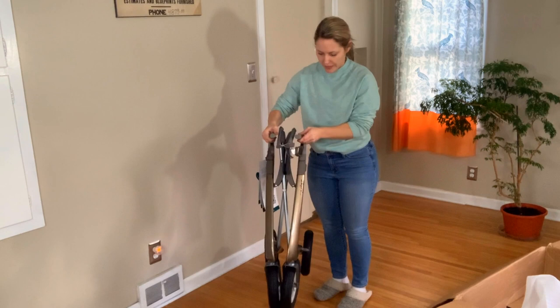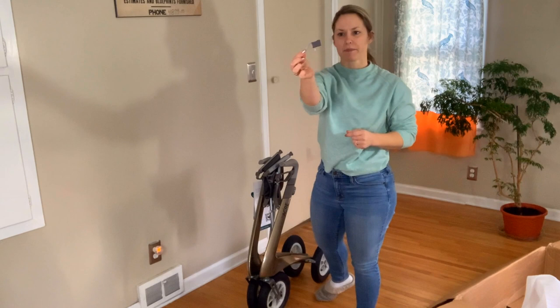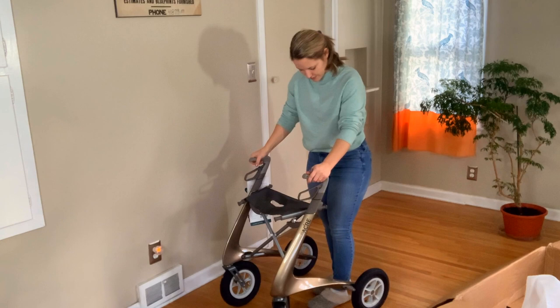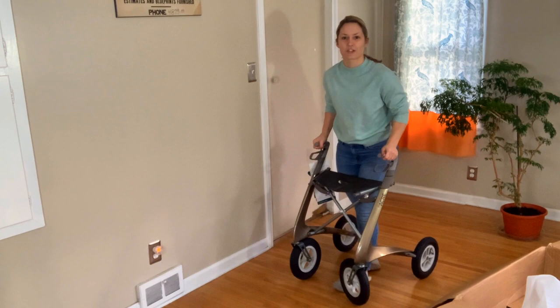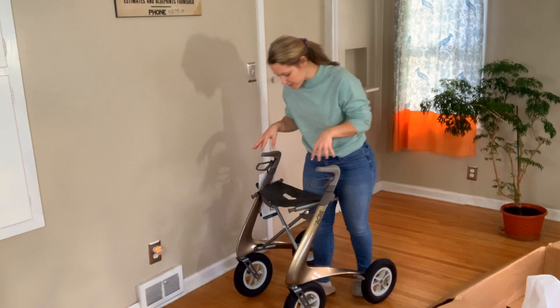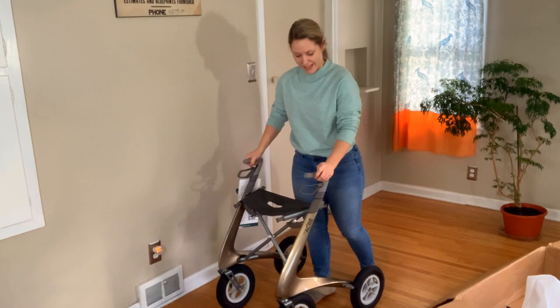It looks like it is a gold metallic, which I'm loving. It comes with something just holding the two tops together. These tires are definitely sturdier than the Ultralight — they look like car tires. There are deep grooves in them and they have little forks on the front. You can tell it would stick to a lot of terrain — even maybe the beach, definitely grass. Looks like it'd be able to handle a lot. And this is nice and high.